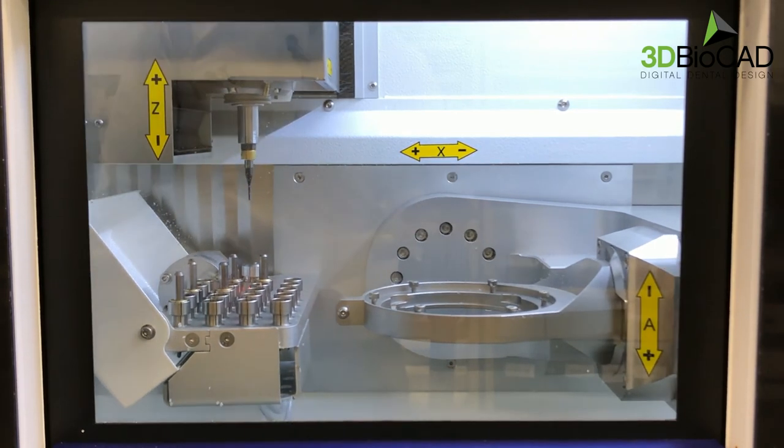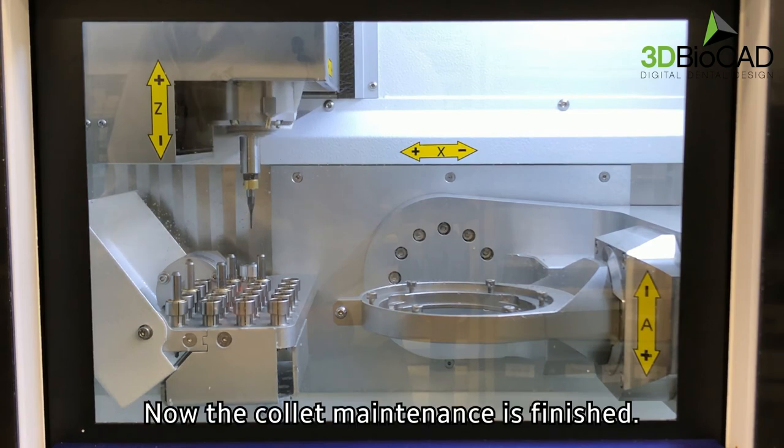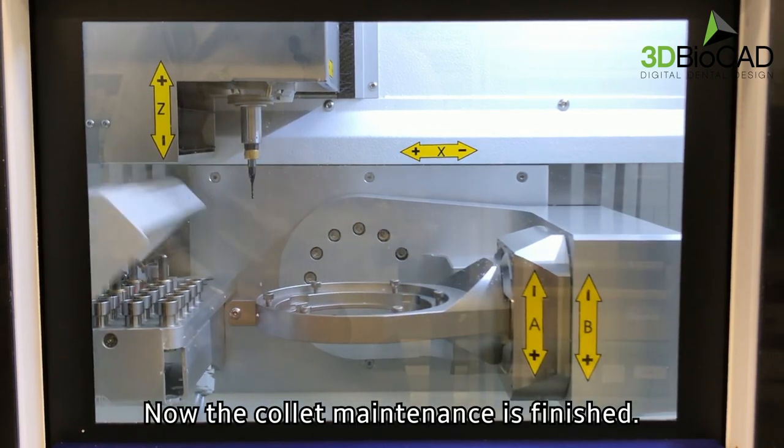Close the door and click OK on the screen. Now the collet maintenance is finished.